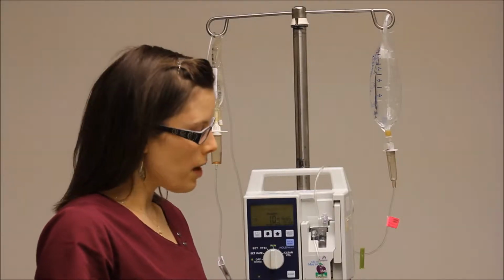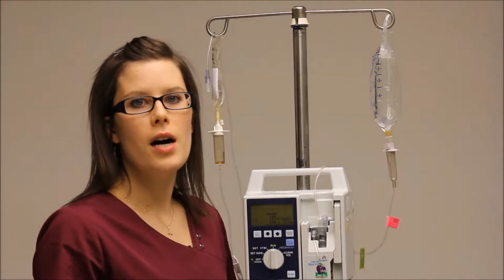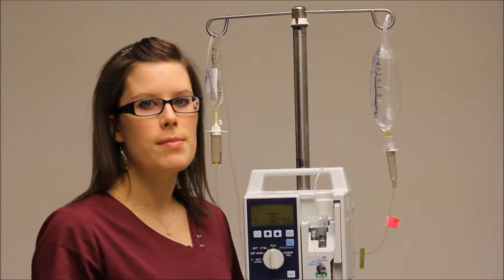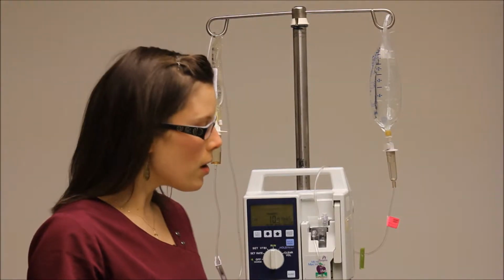Hey guys, today I'm going to go over the pumps so you can have a better idea of how to use them when you get into the sim center. There seems to be a lot of confusion, so hopefully this will help clear things up.